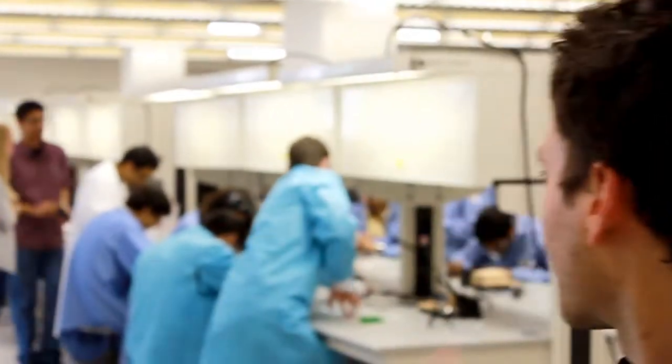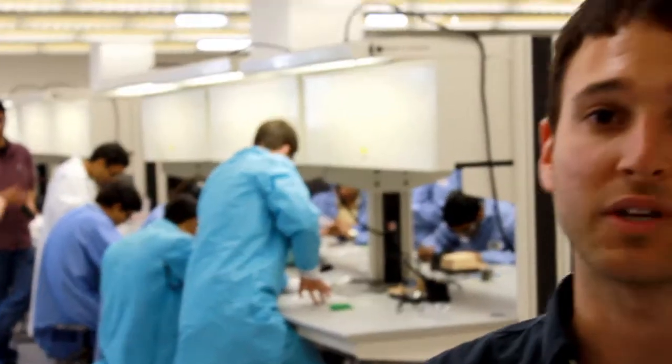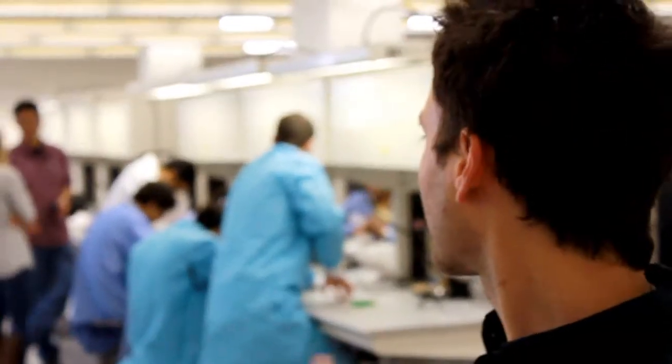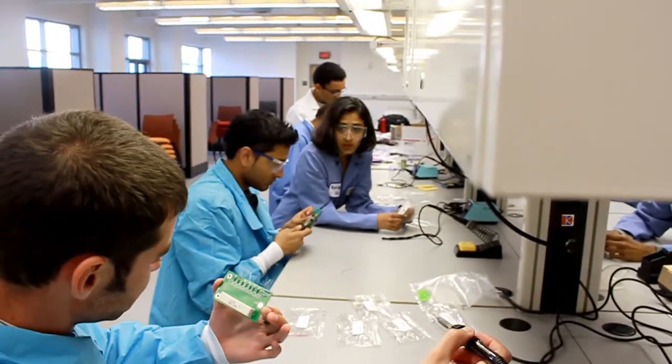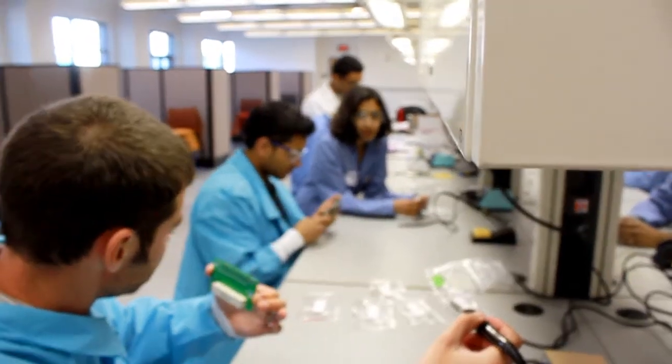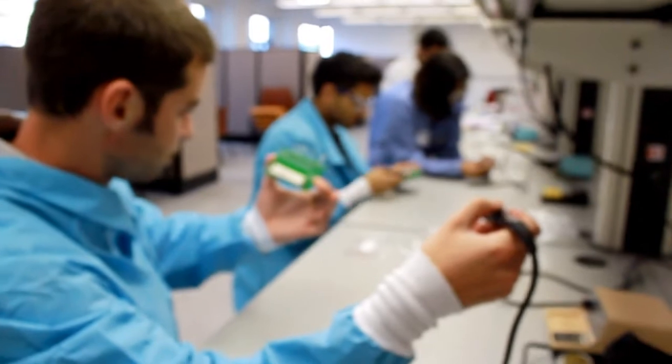Over here to the right behind me, we can see that these guys are building kits, electrosurgery unit testers. Engineering World Health sends all these used equipment to third world countries, and one of the major equipment that's being shipped over are electrosurgery units.